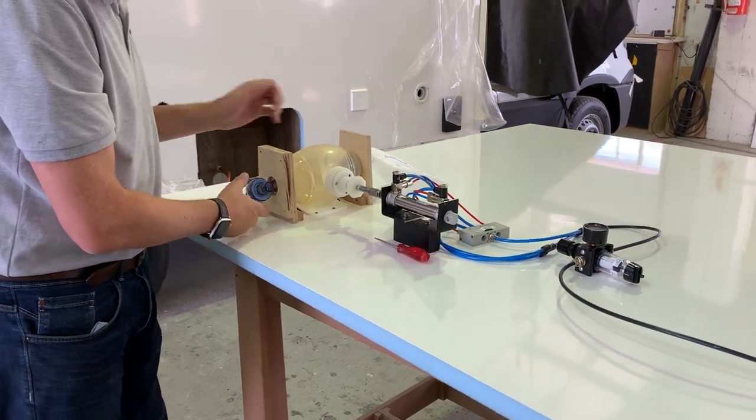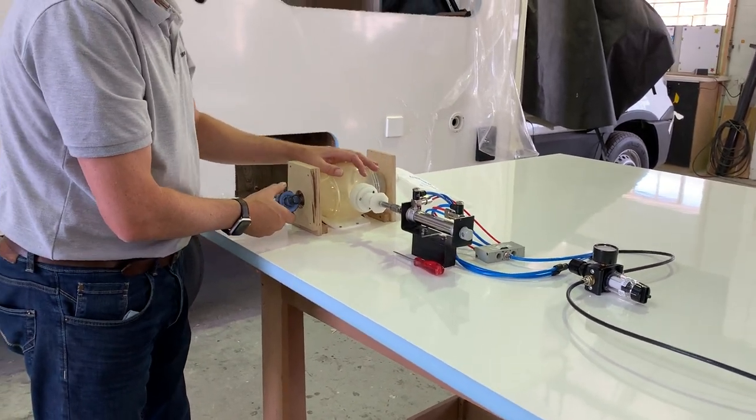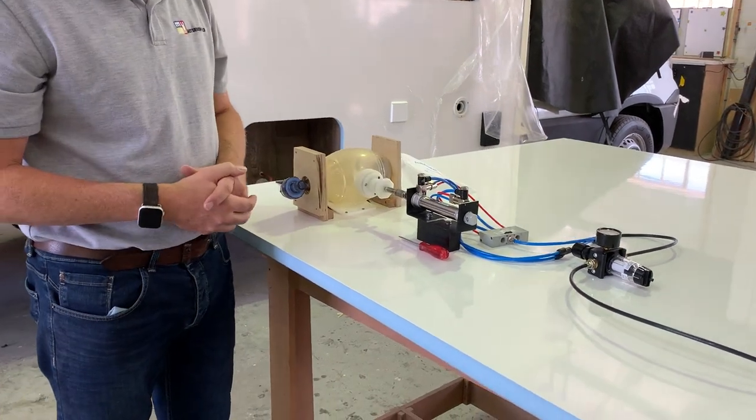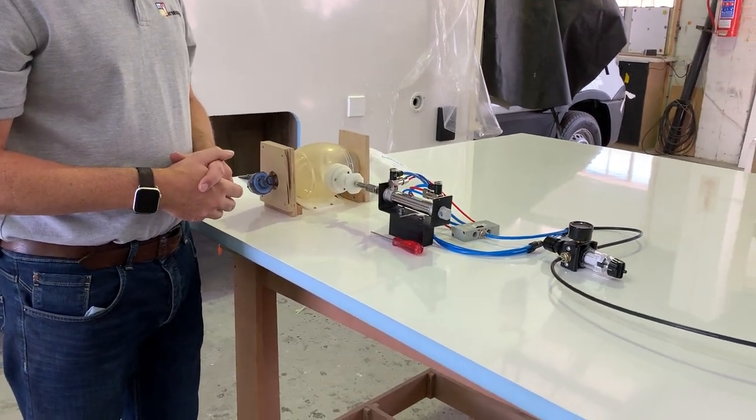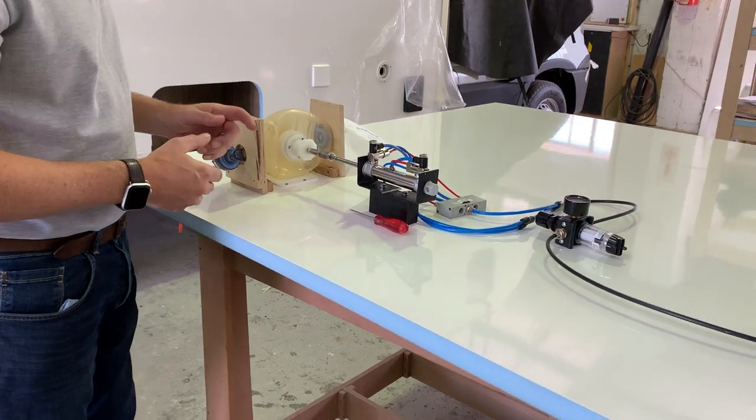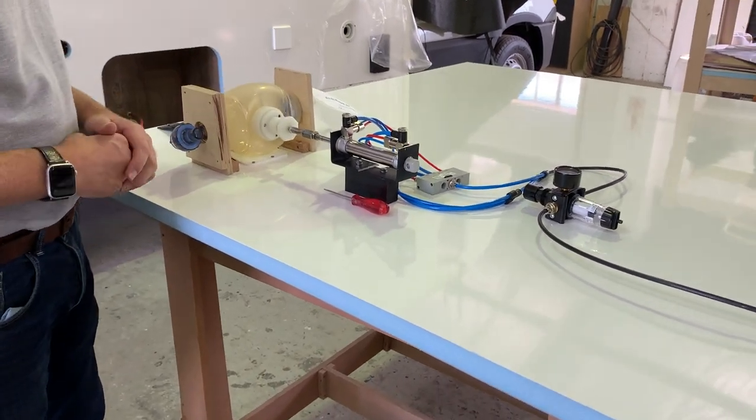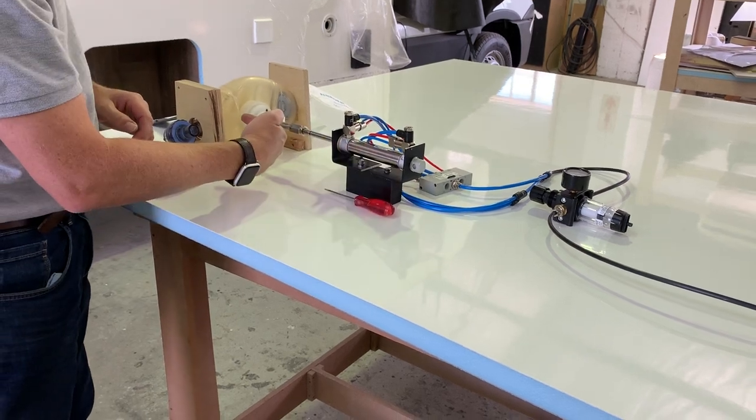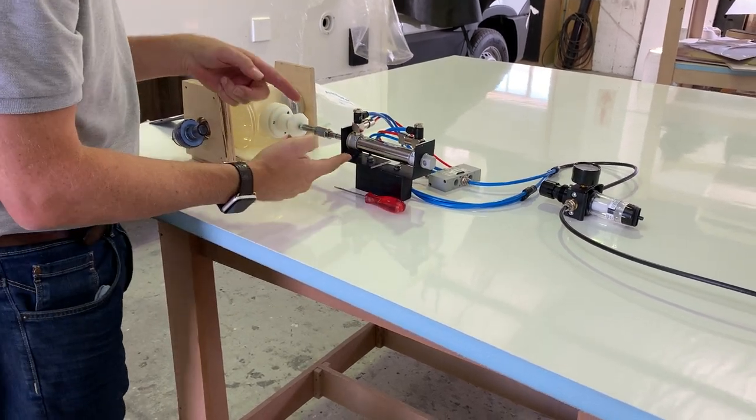So Tony, I don't know if you just want to switch it on. It is set at the moment to deliver air every six seconds. It's fully adjustable, so we can adjust the outstroke, the deliver stroke, and the retract stroke at different speeds.